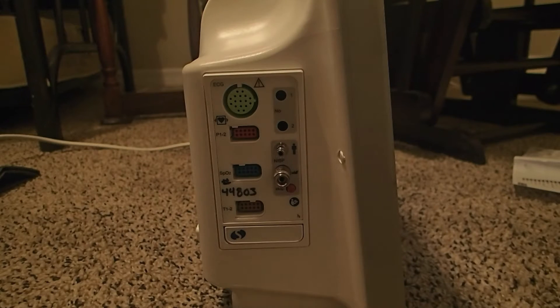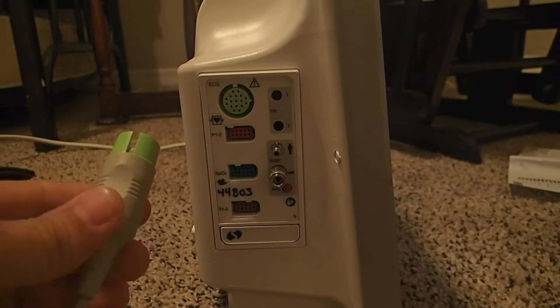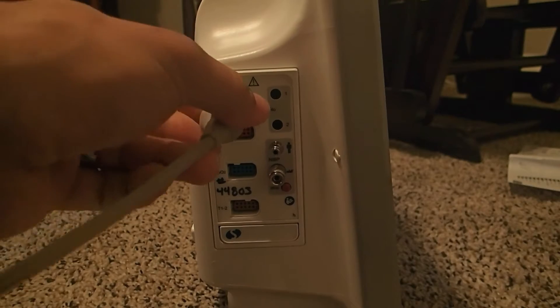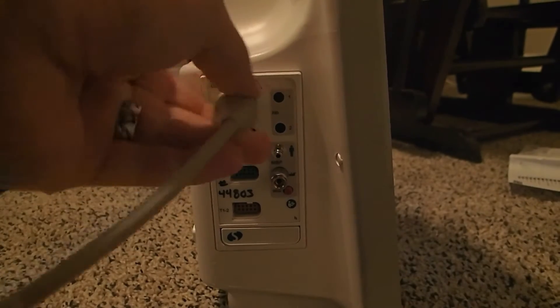To monitor ECG, we need to plug in our ECG trunk cable into the left side of the device.